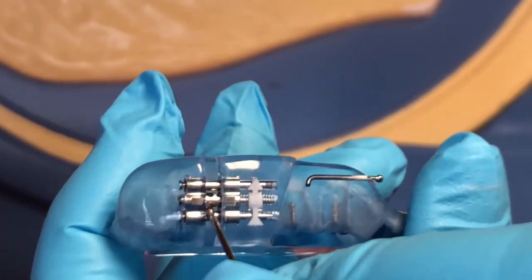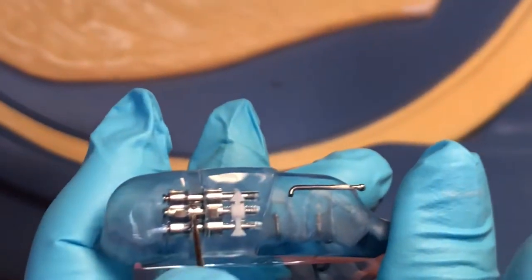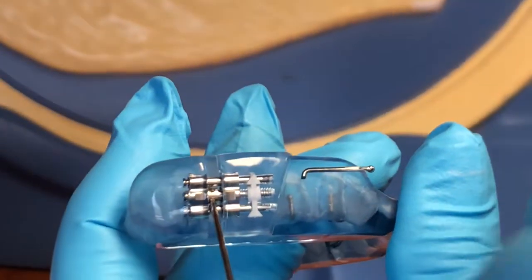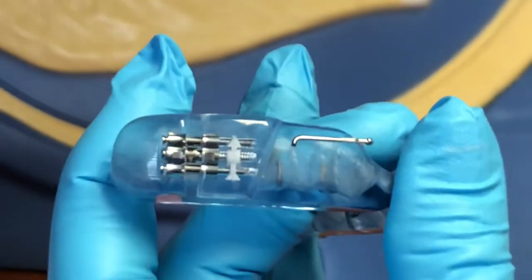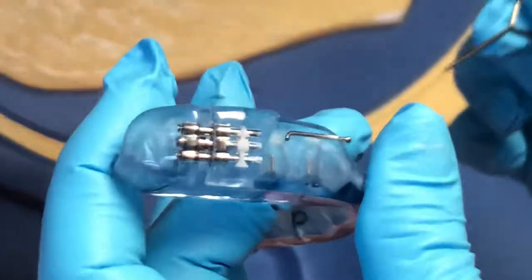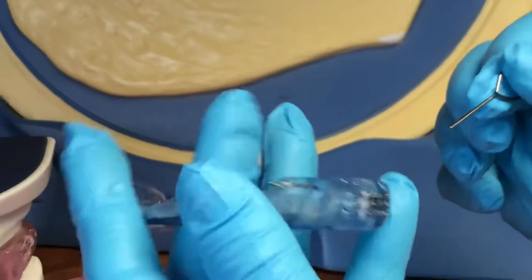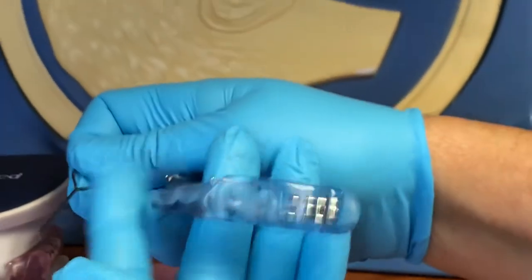I'm going to find, again, a hole closest to the base of that arrow. And I'm going to move it again in the direction of the arrow. And now I adjusted both sides two more turns. So it's important to do both sides equally.